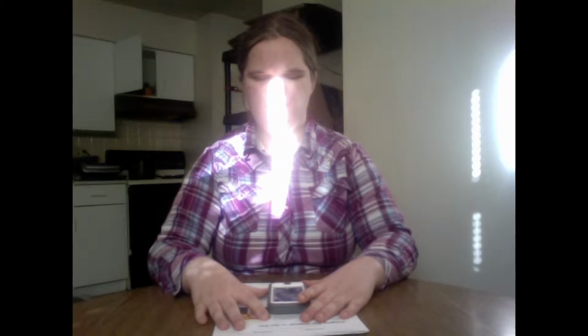The manual picture is set by default. The first thing I want to talk about is how to take a good picture. This procedure applies to any document that you can find, or anything really that you want to take a picture of. The first thing you want to do is lay your phone flat in the middle of the page. Make sure that it's as centered as you can possibly make it, but you want to center not the phone itself, but the camera lens.